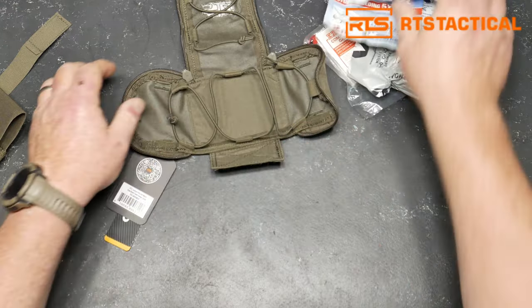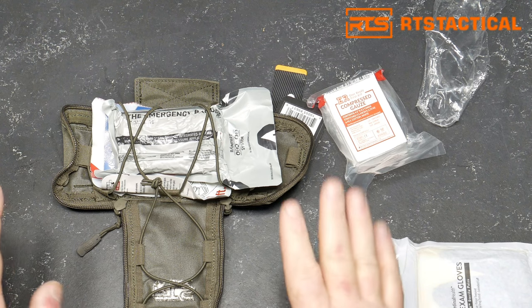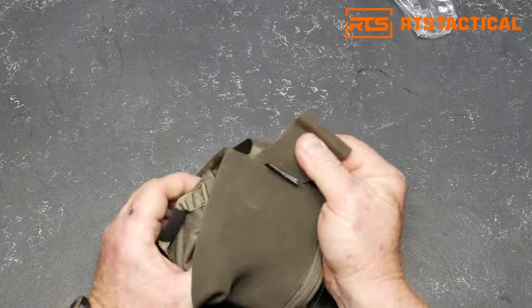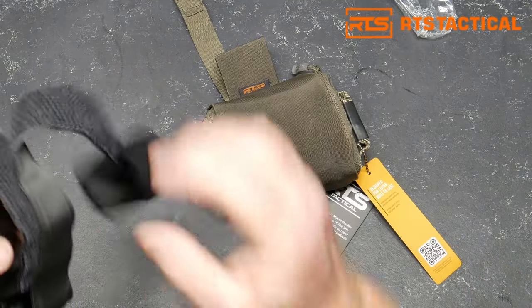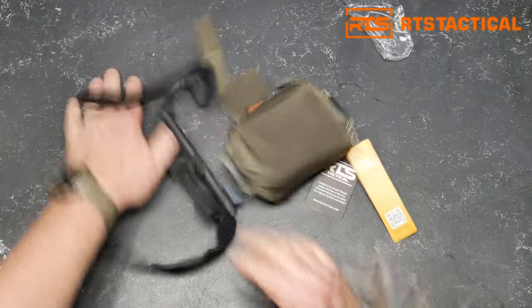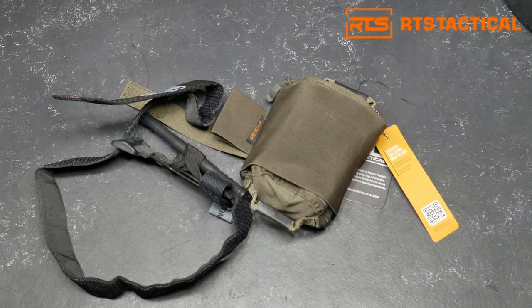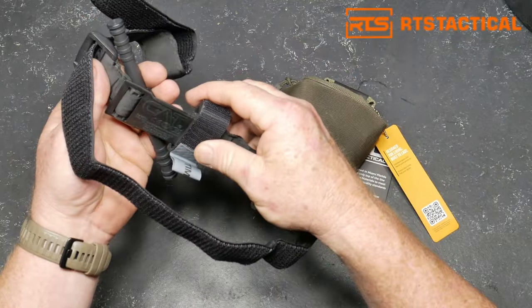So that's it in a nutshell. The cool thing is the bag — the technology behind the bag is what you're paying for. I'm probably going to supplement this with a lot of other cool items. You can leave this on your belt, which is good because I hate putting MOLLE webbing together. I've got a fun time coming up with some guys from 10th Mountain Division, and the guys from Third Bat are going to come hang out — we're going to drink some beers and do some barbecue. God bless America, God bless the men and women in uniform 24/7 for our freedom — because freedom is not free. That's a nice tourniquet. Y'all be good.